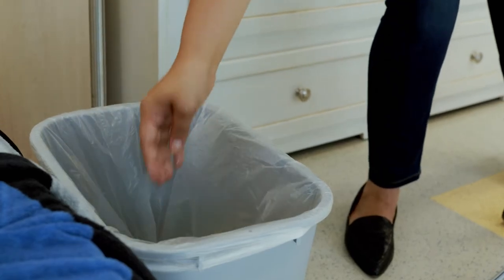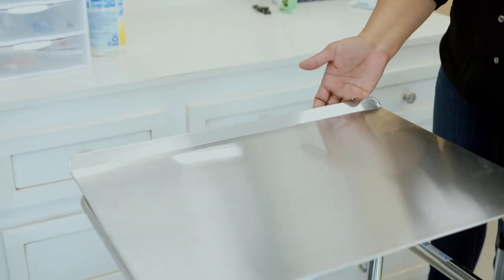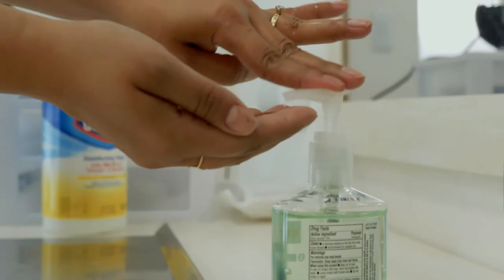You should be able to reach this area easily. Your child should not be able to reach it. And finally, clean your hands again.